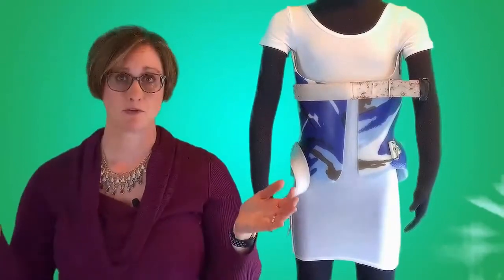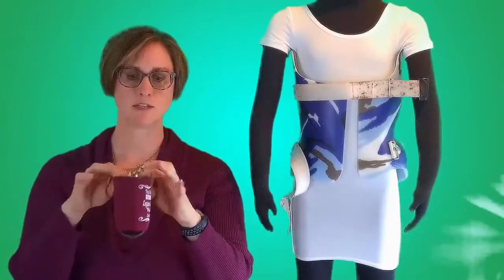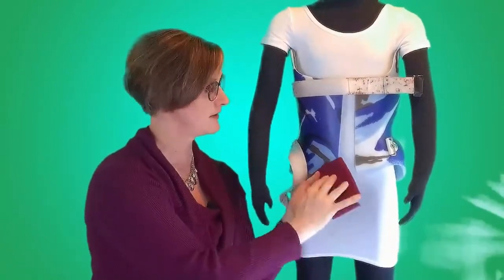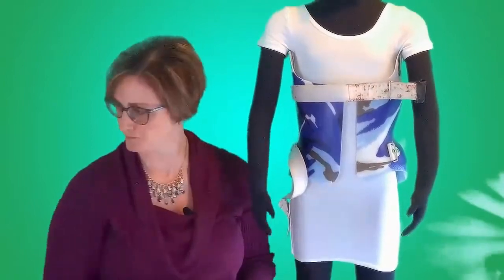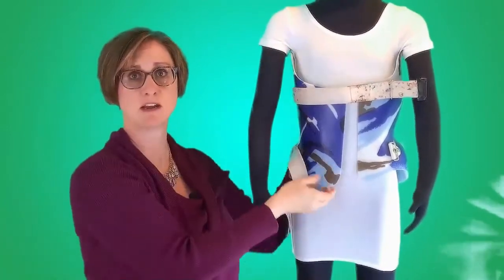However, if you have an old laptop case or if you find an inexpensive laptop case, you might use that. Sometimes we have drink koozies laying around at home that we don't have a good use for anymore — you could cut one and use it to wrap around and pad the brace. Get creative looking around your home to see what you might be able to use to soften some of these main contact points.